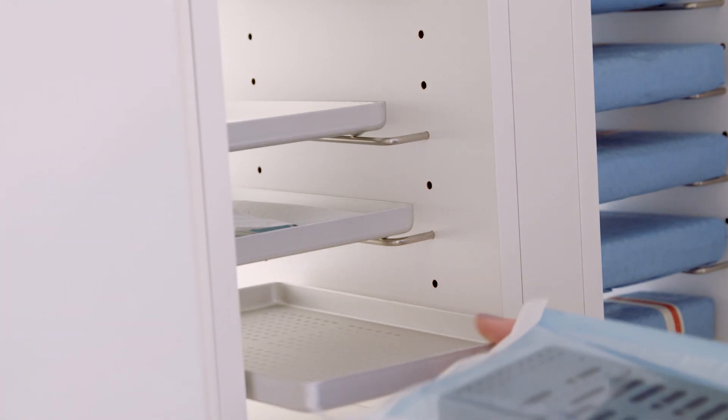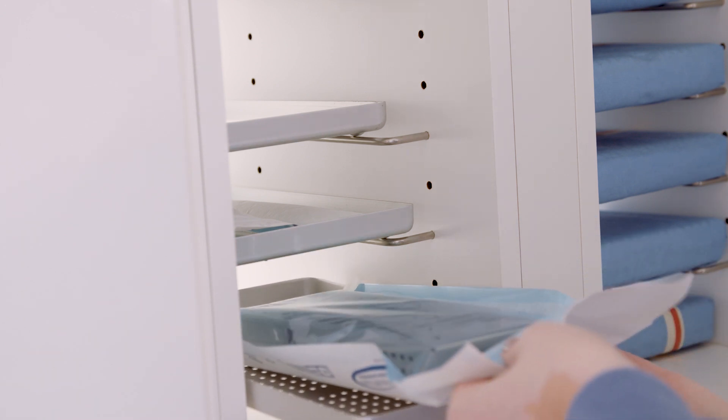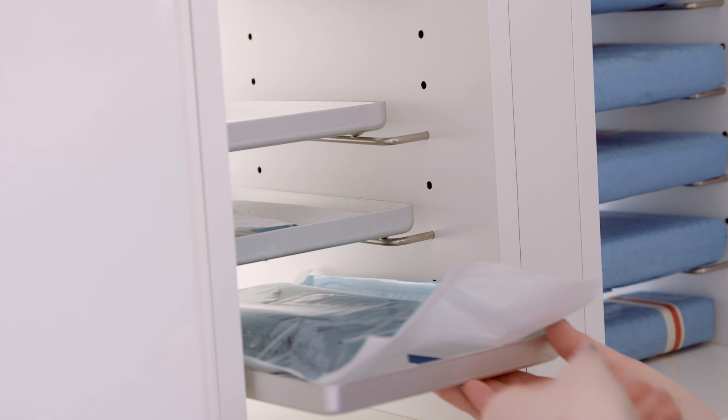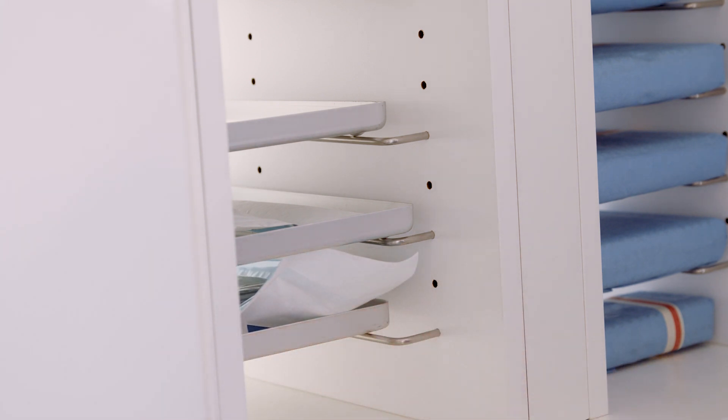Processed pouches should be stored in a clean, dry location until next use. Once the pouch is opened for use, the peel-off indicator strip can be attached to the patient's chart if desired for traceability.